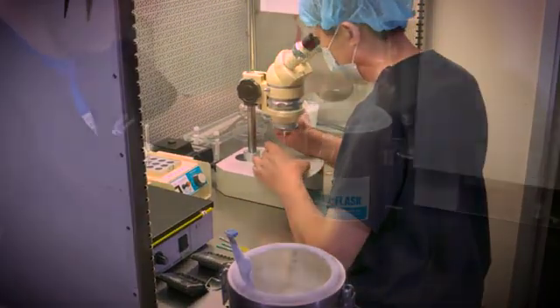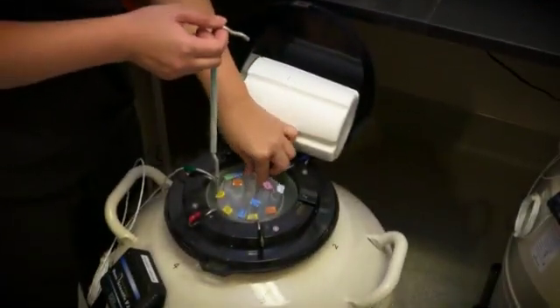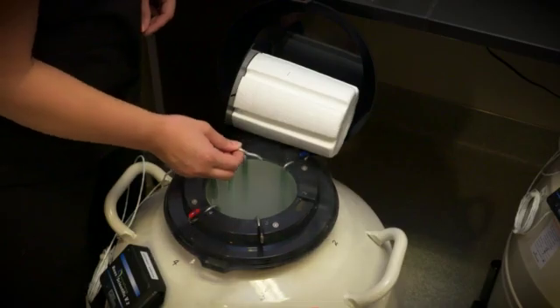The embryos, once frozen, are placed into individual canes and tanks that are submerged in liquid nitrogen at approximately negative 320 degrees Fahrenheit. These tanks are constantly filled and monitored 24 hours a day, 7 days a week.